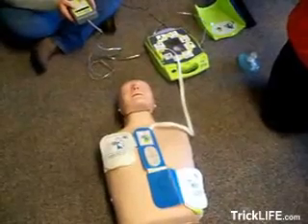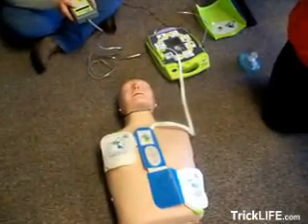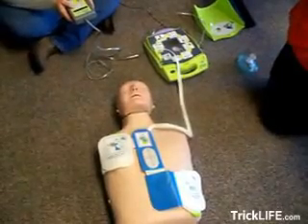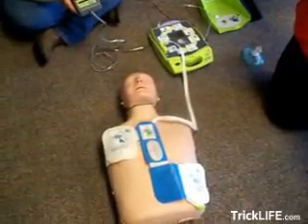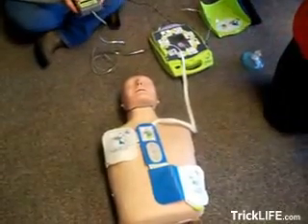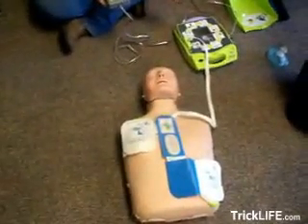Don't touch the patient. Analyzing. Treatment advised. Don't touch the patient. Press the treatment button. Treatment delivered. Open airway. Check breathing. Check circulation.